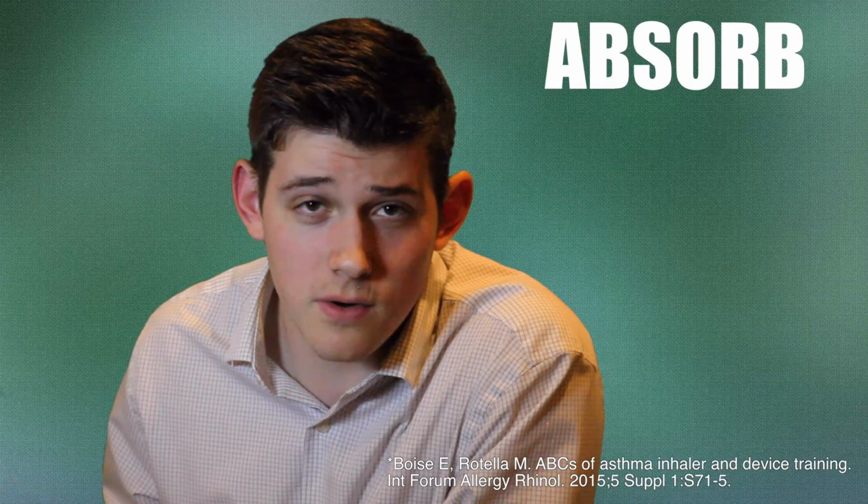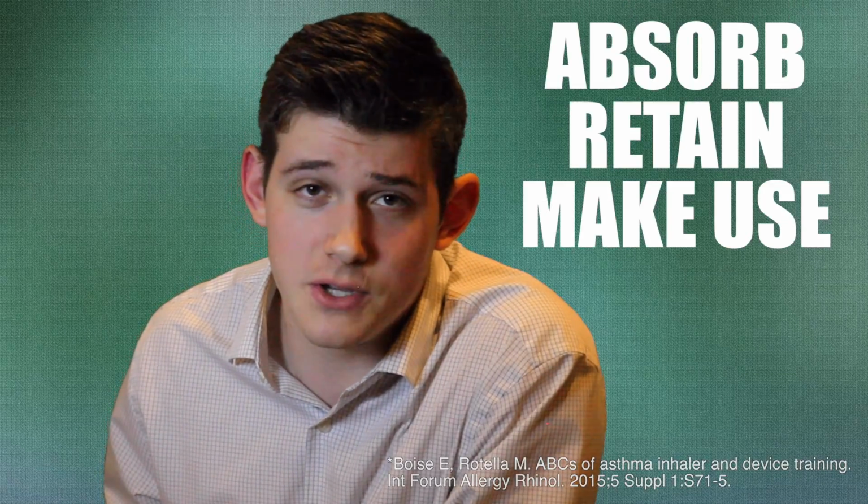Following this evidence-based approach will increase medication adherence and decrease asthma symptoms in your patients. Remember that a knowledgeable teacher directly impacts your patient's ability to absorb, retain, and make use of information. And don't forget to include the parents either. They should be just as familiar with the procedure as the patient.